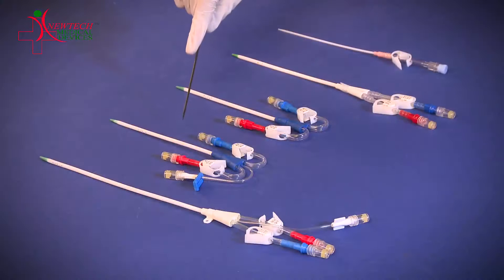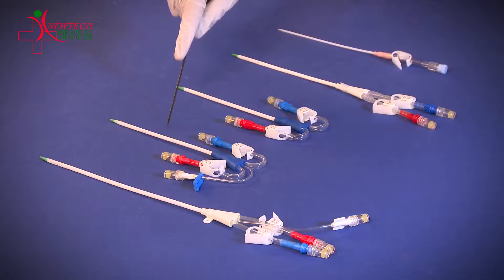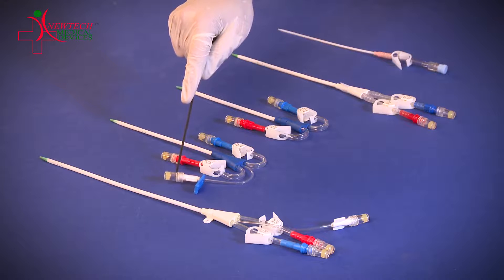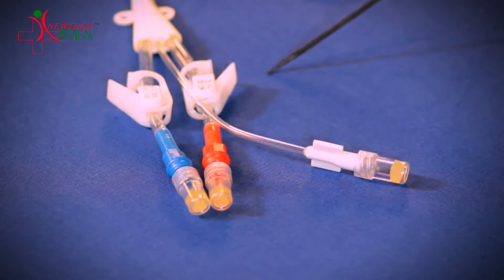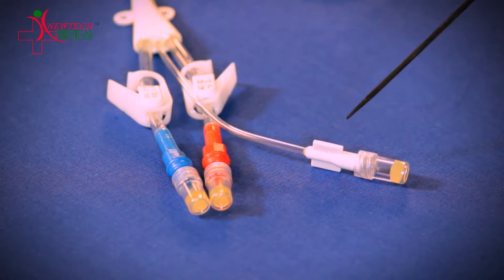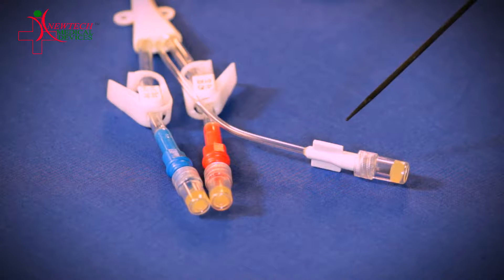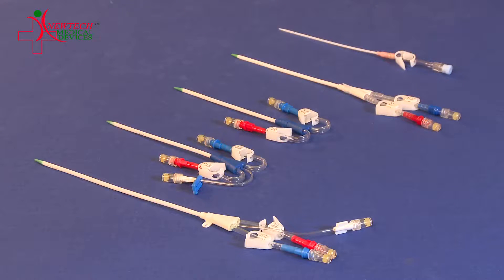This is a triple lumen catheter. These two catheters are almost the same except for the third port, called the medial lumen, which is available in the triple lumen catheter. Next comes the triple lumen catheter with straight extensions. The triple lumen catheters are available in 12 French in various lengths. All our catheters are radio-opaque.